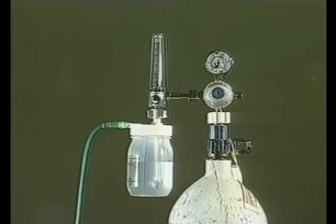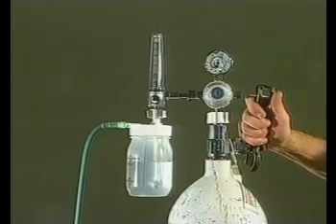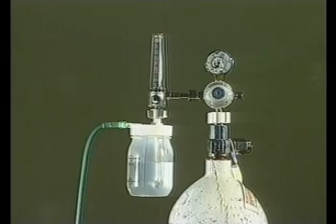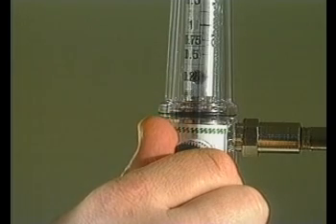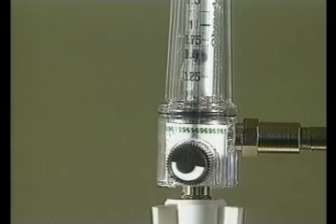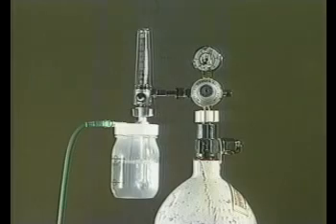Slowly open the cylinder valve until fully open. On this type of oxygen cylinder, this is done with a spanner; some larger cylinders have a hand wheel control. Then adjust the oxygen flow with the knob on the flow meter. On this flow meter, read the flow from the middle of the ball. It is showing 0.5 of a litre per minute, which is half a litre per minute. The assembly is now complete.